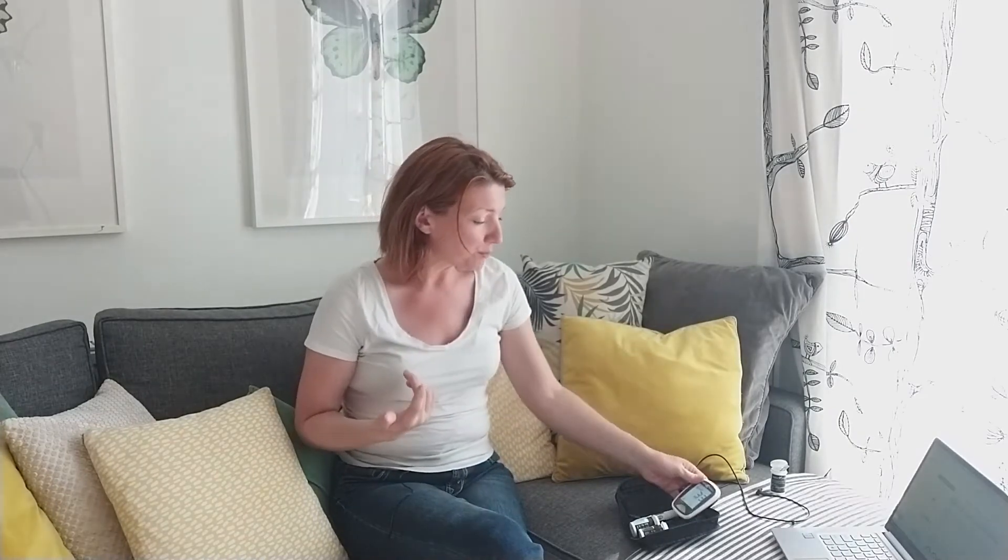Hi, I'm Maggie Jones from CancerVMe, and today I'm going to show you how to take your blood glucose ketone index. I use my Keto-Mojo device right here. You can use any blood meter and glucose meter combination — this one just has both combined in one, which I like a lot.